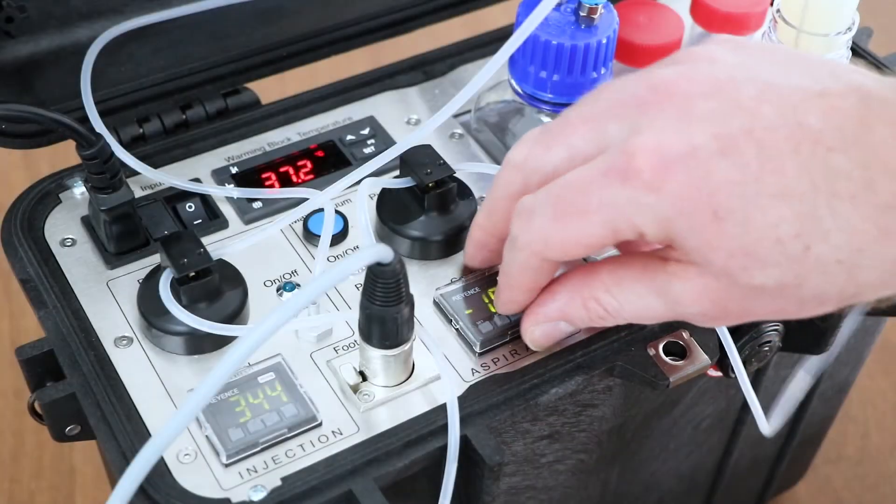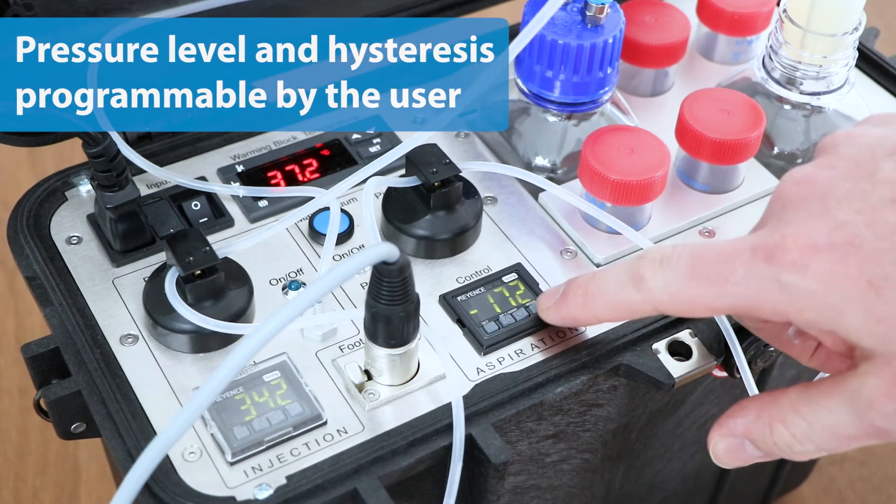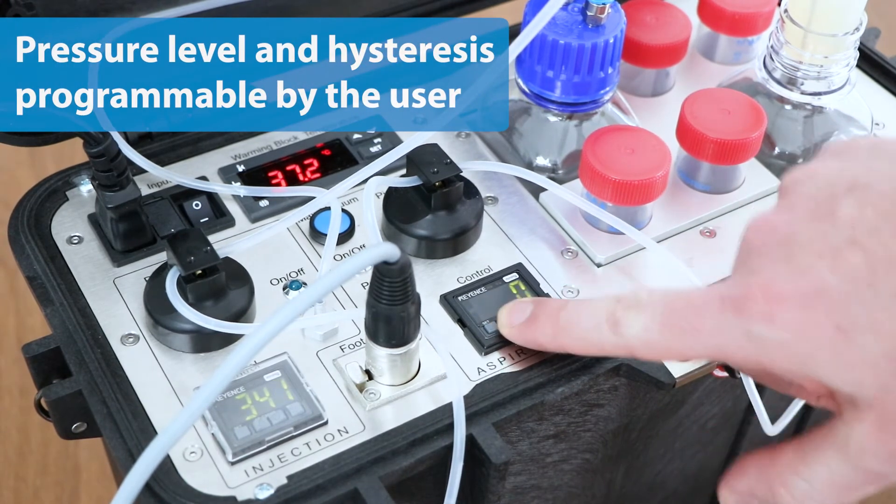The injection and aspiration pressure can be set individually on the respective vacuum control panels.